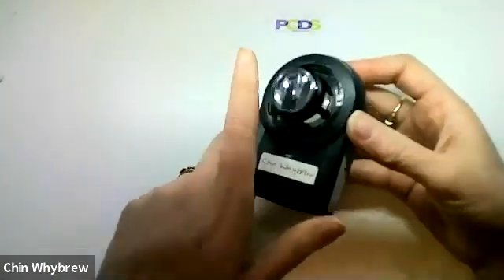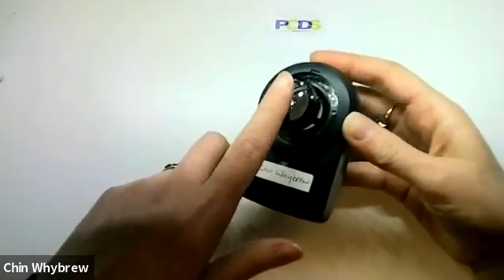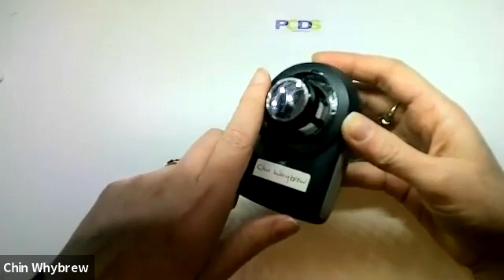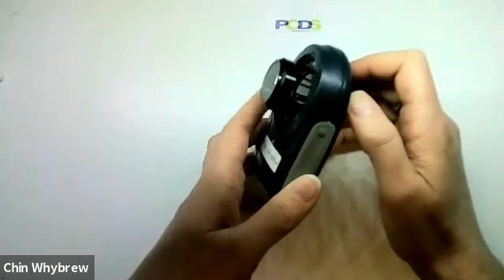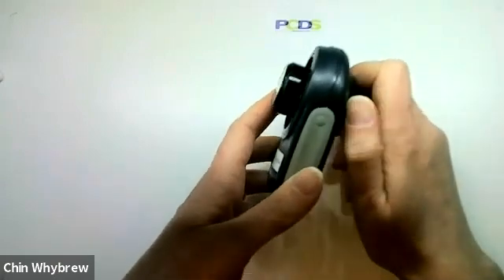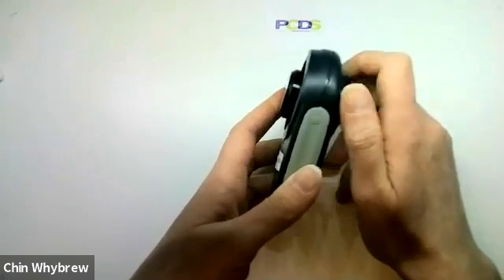It has quite a small end plate. It doesn't come with a small contact adapter, but actually the end plate is quite small anyway. And I've never had a problem focusing it and using it on smaller areas.